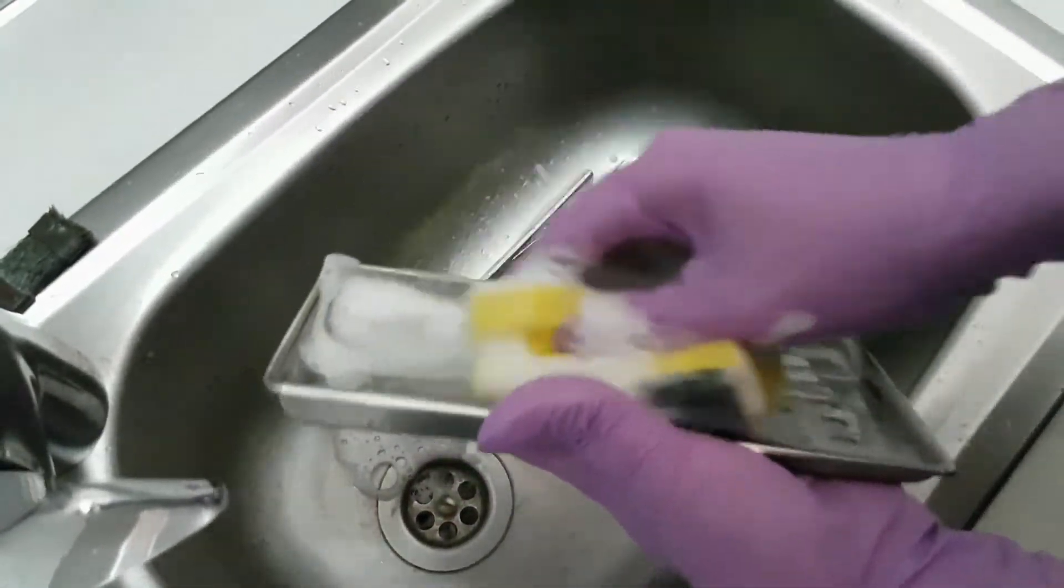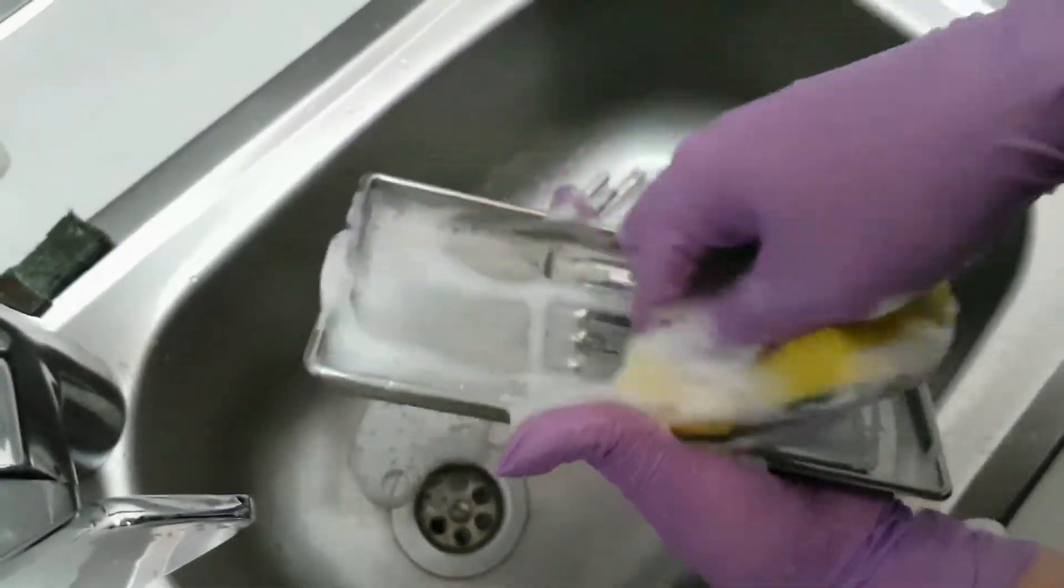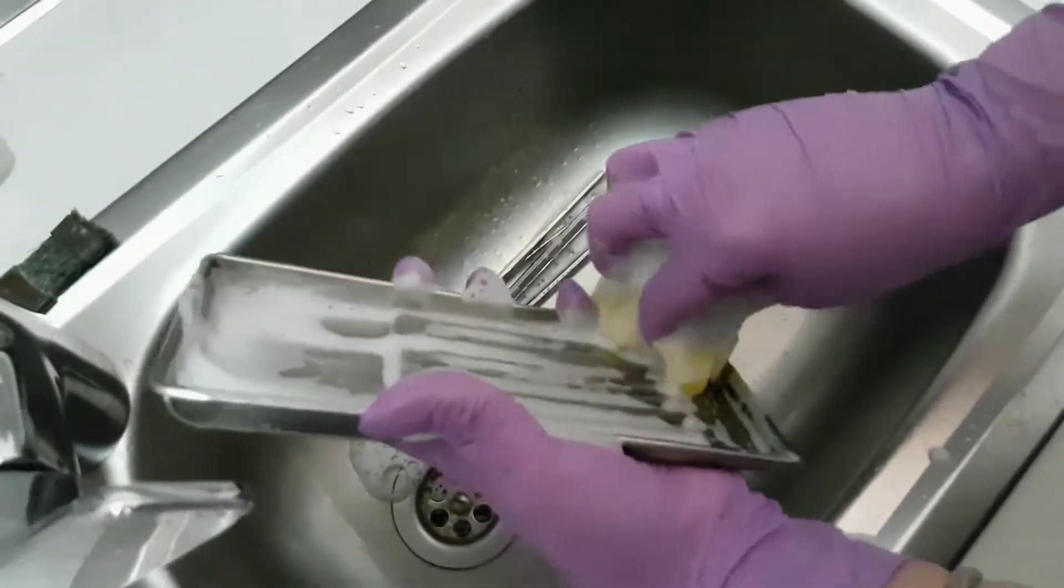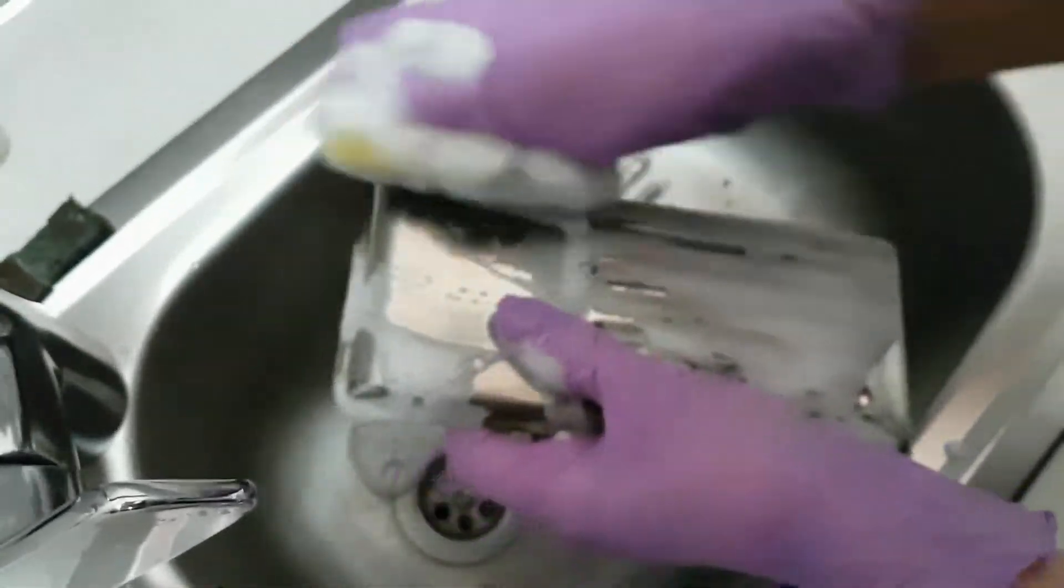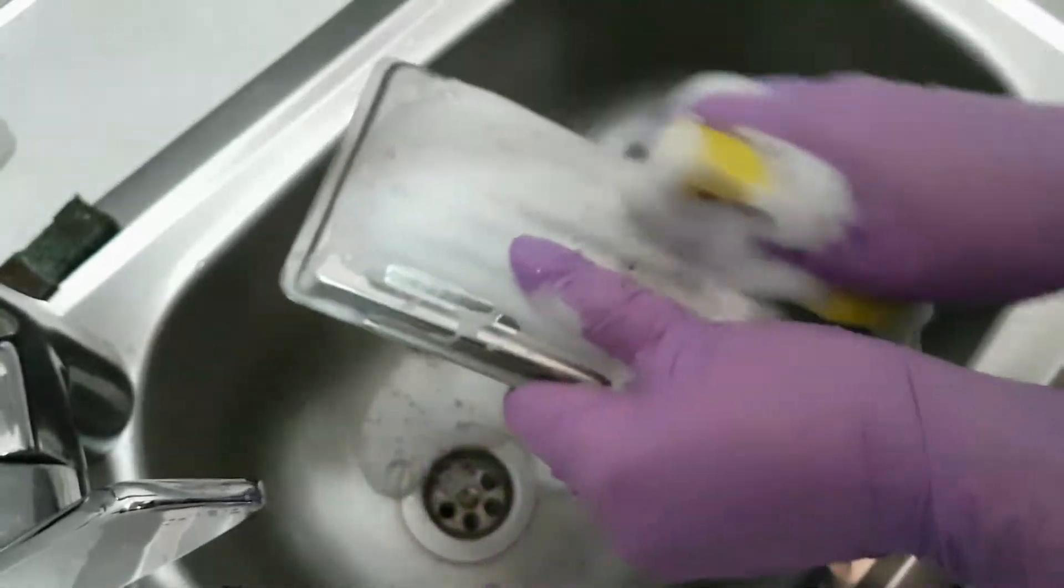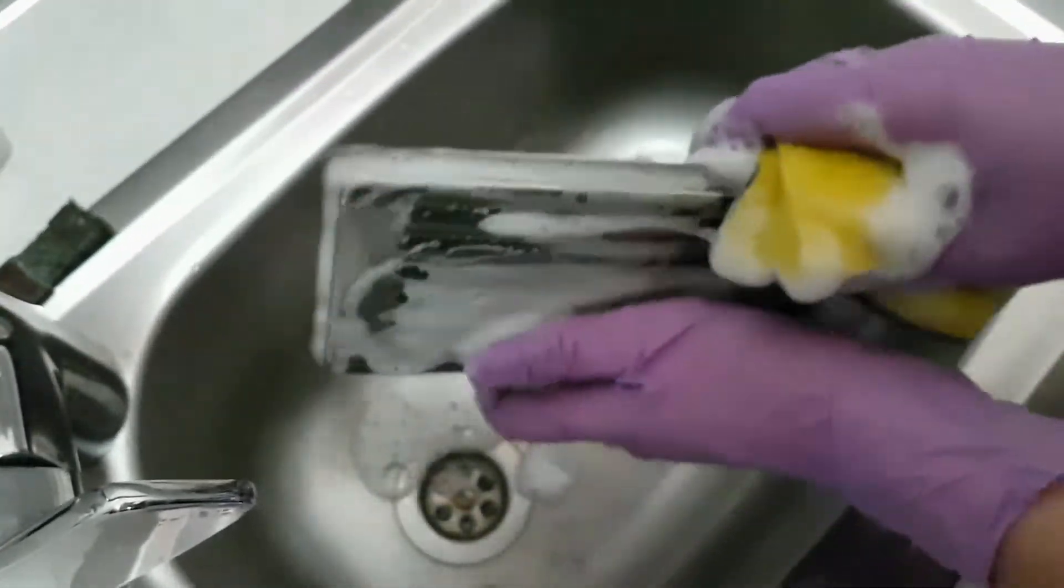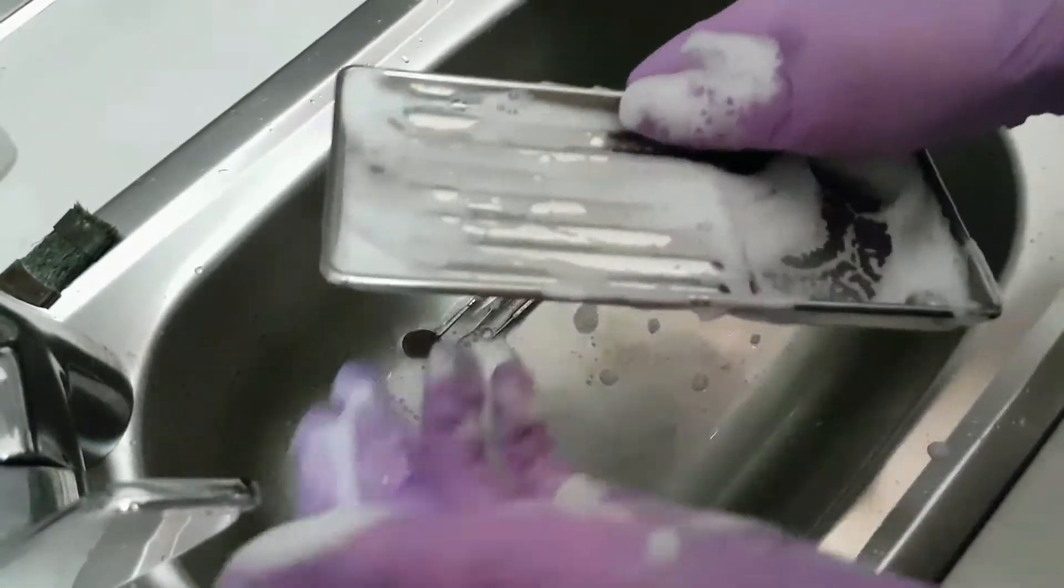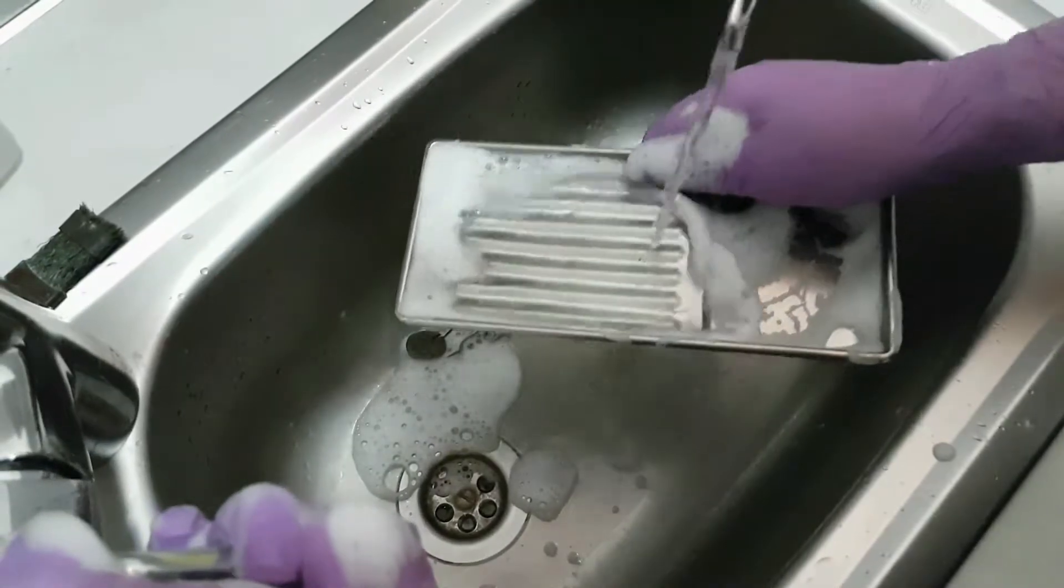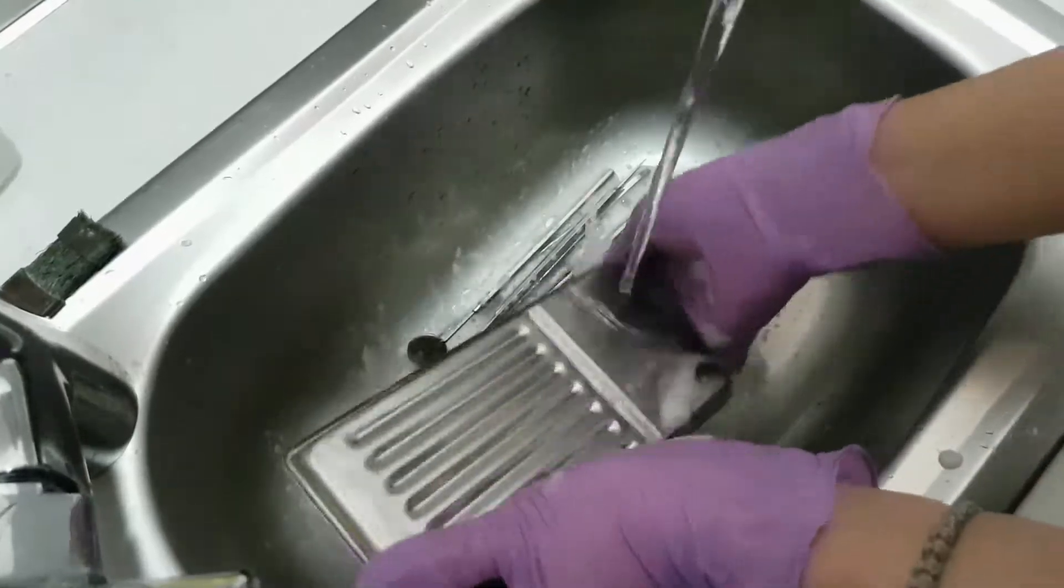Every instrument has to be thoroughly cleaned. After this, we wash out with water every instrument, and the instruments are all wet.